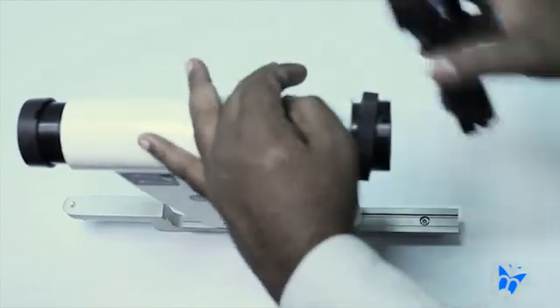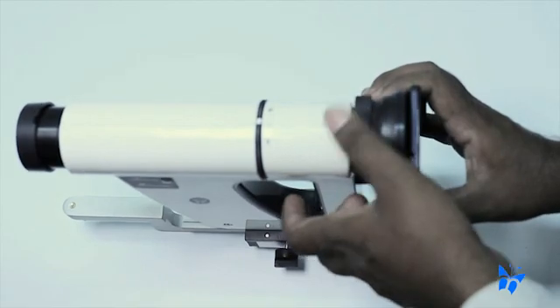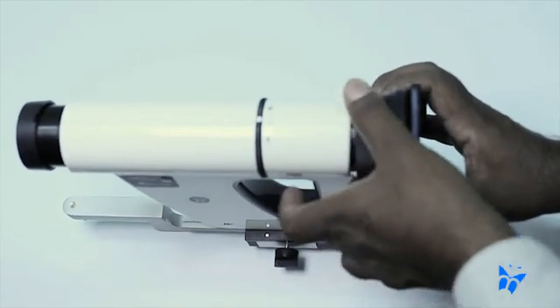The universal phone holder may now be screwed to the top FOP device, using the threaded centering ring provided on the FOP.